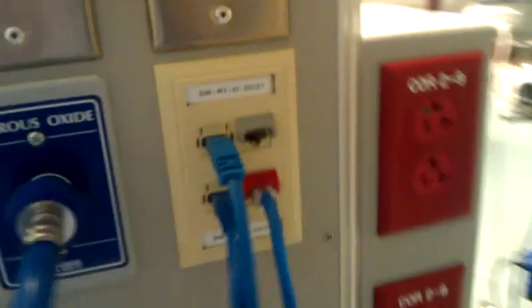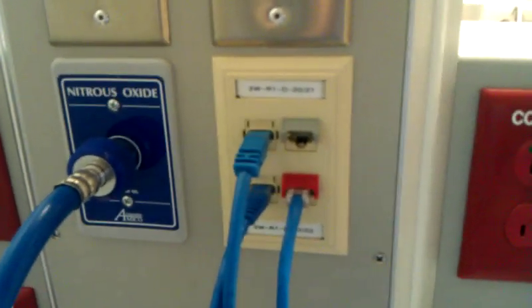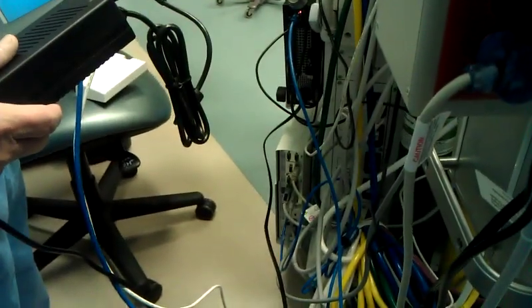Moving to the back of the machine, we'll start with the solar cable. There's the mounted PC with the network cable, and there's the solar machine with the blue network cable coming out of the back. On the boom, it connects into this red hood here. We want to make sure that if they start losing the physiological data, the connection here is secure and the connection at the back of the machine mounted to the anesthesia machine is good.